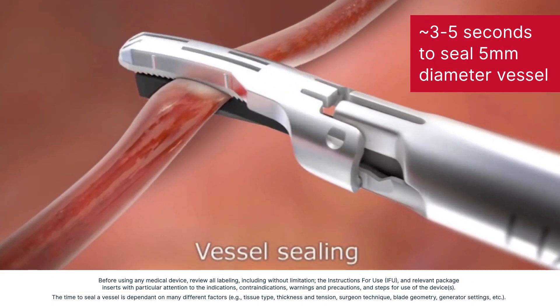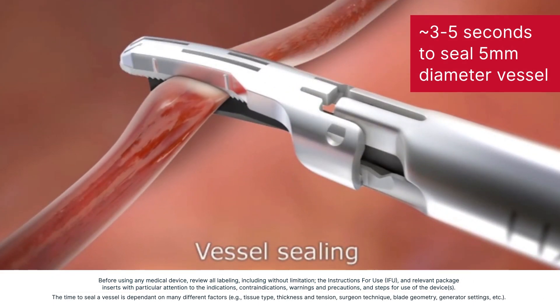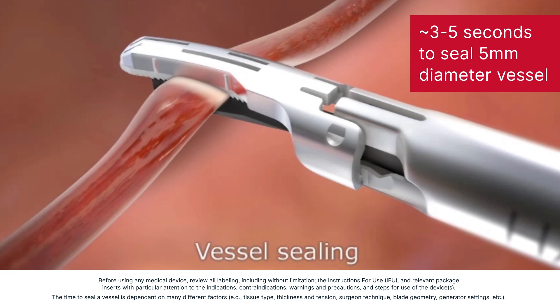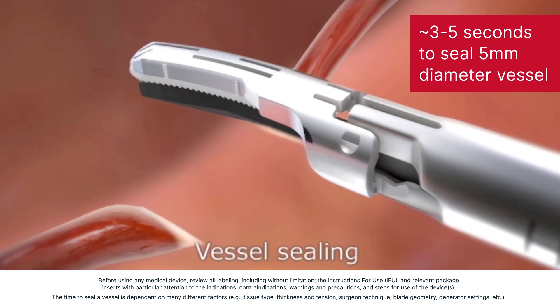In general, ultrasonic energy devices take approximately 3 to 5 seconds to seal a 5 millimeter diameter vessel, and longer with larger vessels.